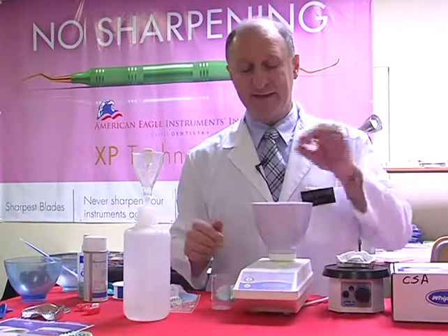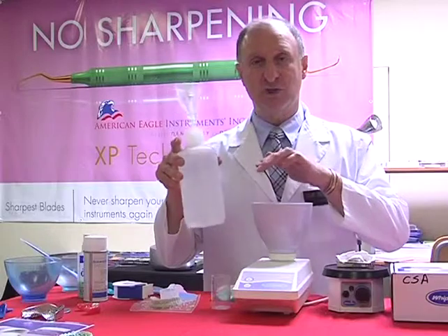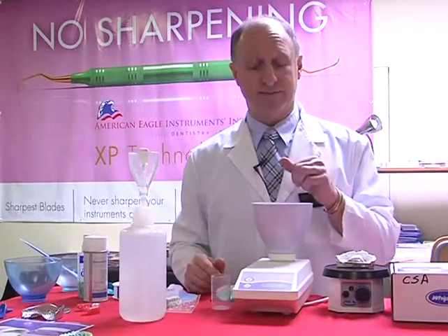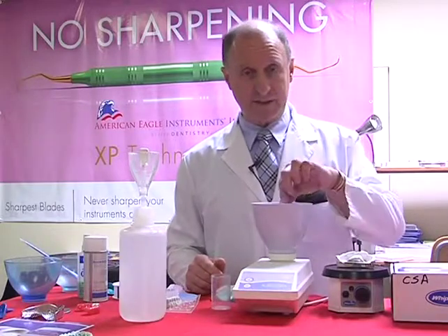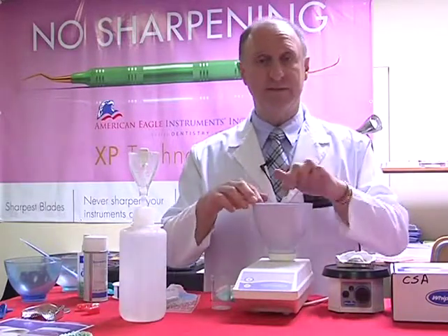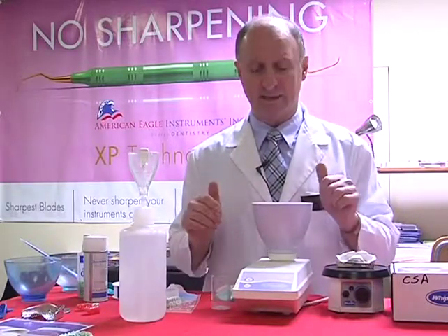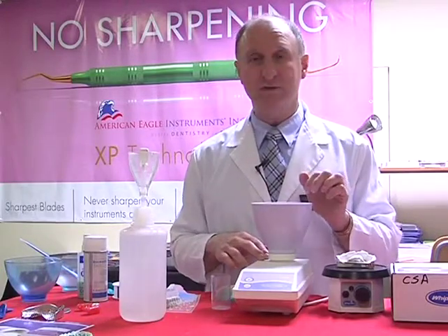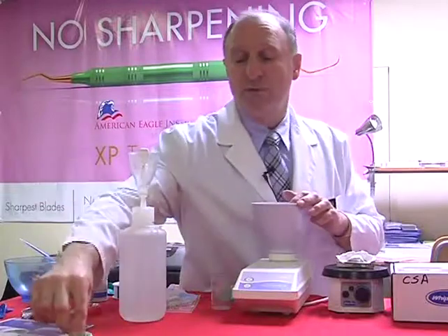We would then add that into our water and make sure it's fully dissolved, and when we go to use it, it's going to accelerate the set. So normally a quarter teaspoonful inside, pour the water in, dissolve it, and then add your stone, and that's going to accelerate it.